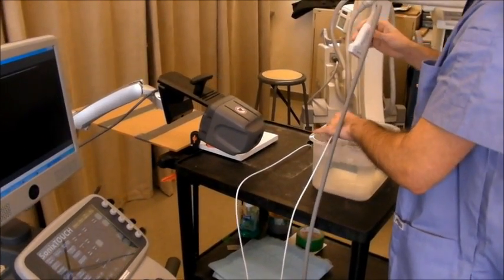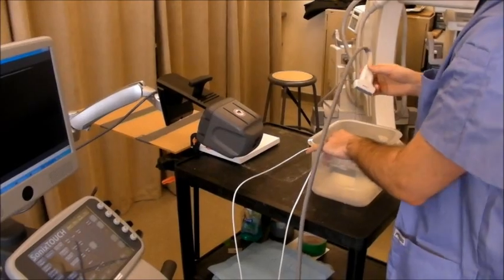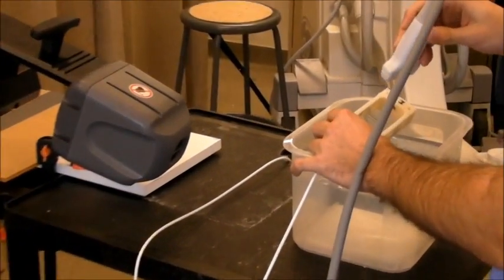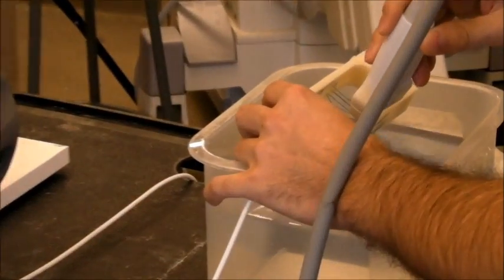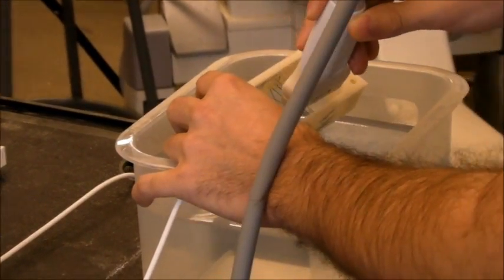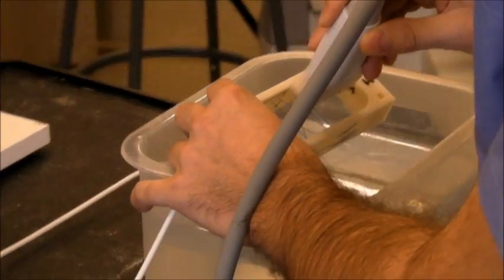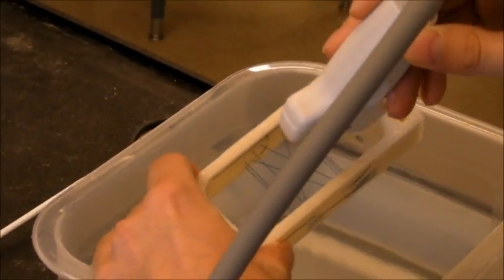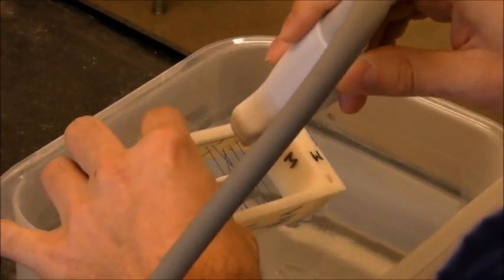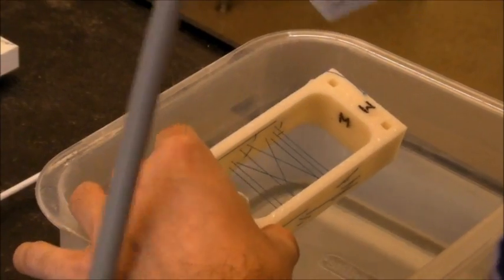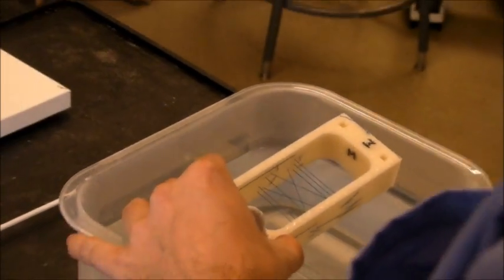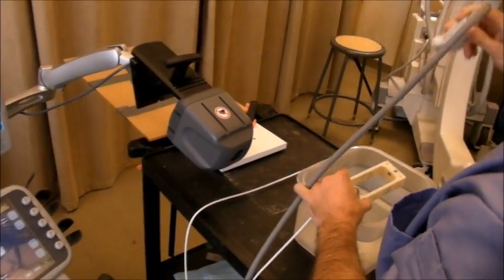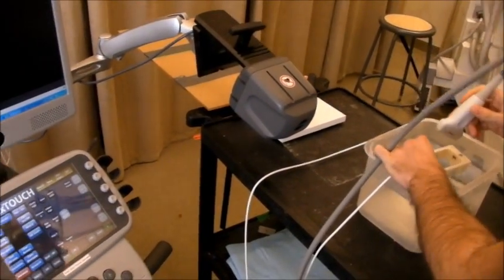Start the calibration. What I'm going to do is, I'm going to sweep through the wires a couple of times and rotate the Phantom, so I'm trying to use the most degrees of freedom possible.